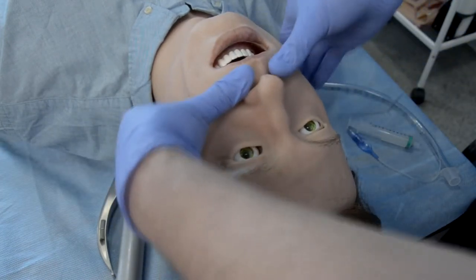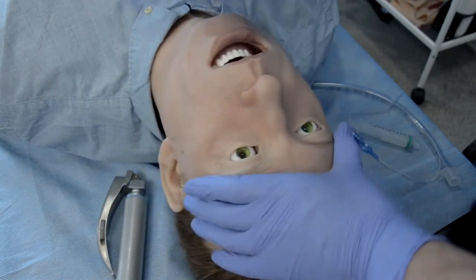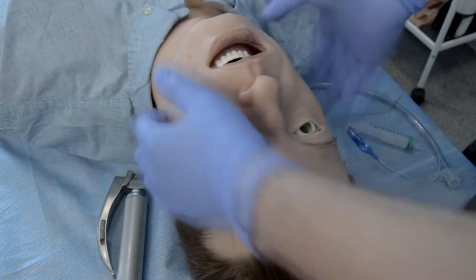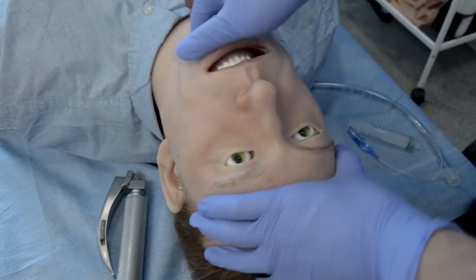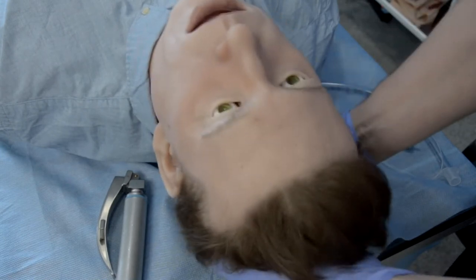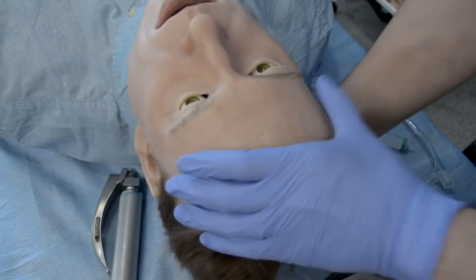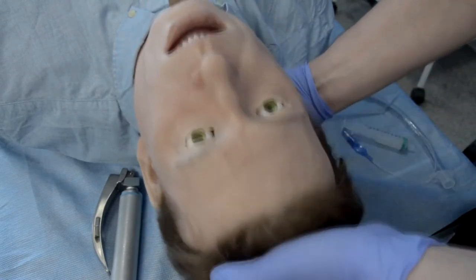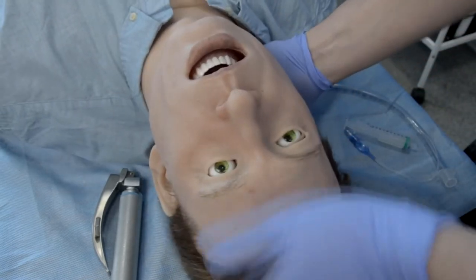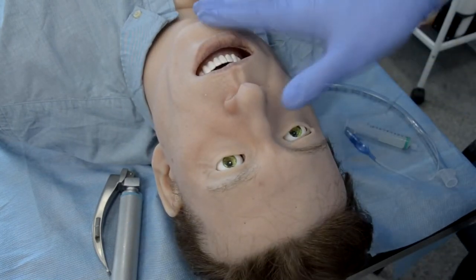The jaw — we get a lot of compliments on the jaw — is nice and soft. The jaw thrust and chin lift maneuvers give a very realistic feeling as well. The head is nice and heavy, as it should be like a real one, and the neck is soft and flexible. You can tilt or rotate Leonardo's head, which enables training for extrication when you're putting a collar on, or many other kinds of training.